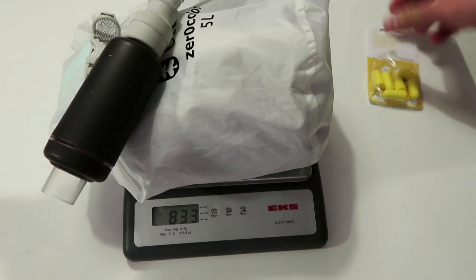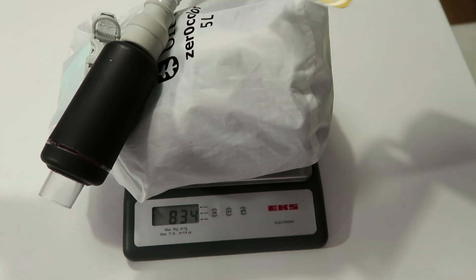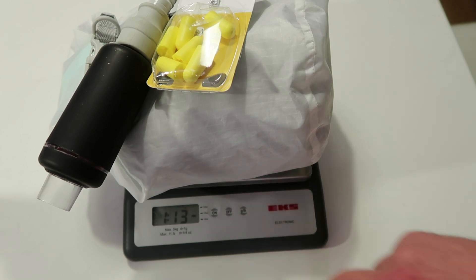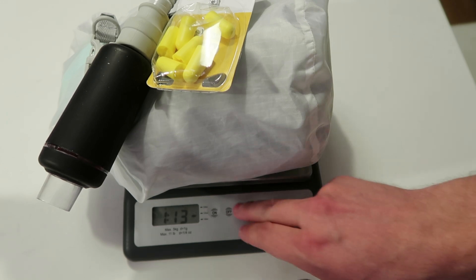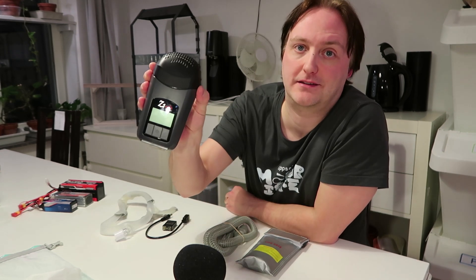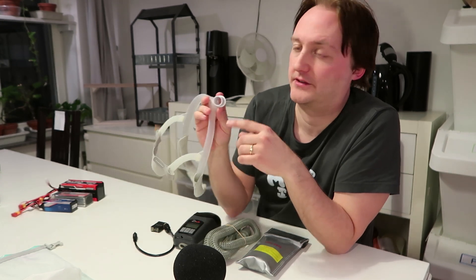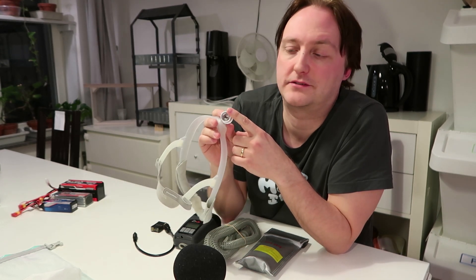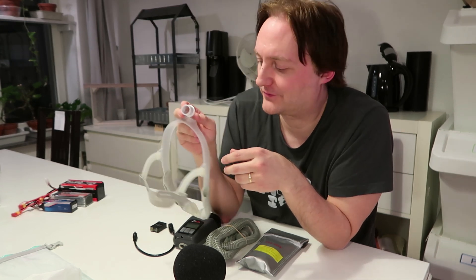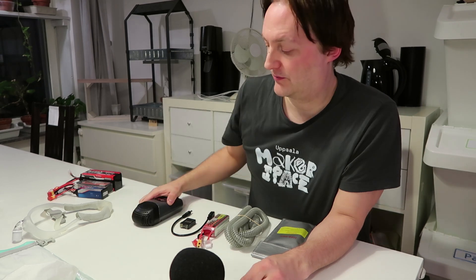You may need some extra equipment like a muffler to reduce noise or some earplugs, which would increase the weight to 842 grams, or 1 pound 13 ounces. When using these travel CPAPs, keep in mind a couple of trade-offs. First and foremost, these small CPAPs do not have a humidifier, so you will be a bit drier than usual. However, there are products you can attach to your mask to retain some moisture from your breath — but I haven't personally needed one. Apart from the CPAP itself, which is somewhat expensive, most things are pretty cheap, even the batteries.